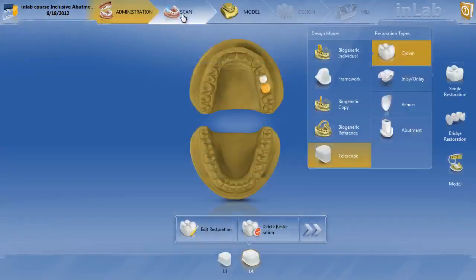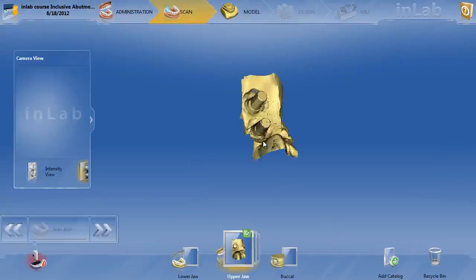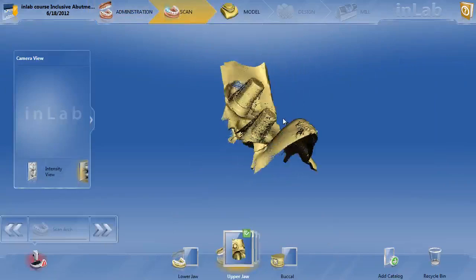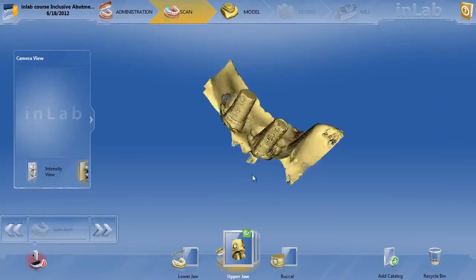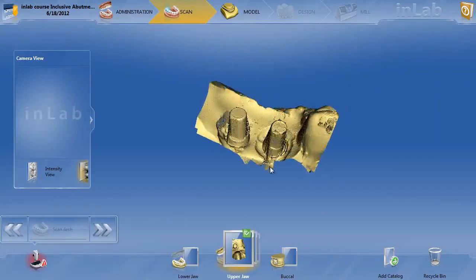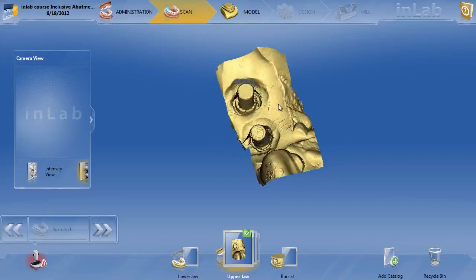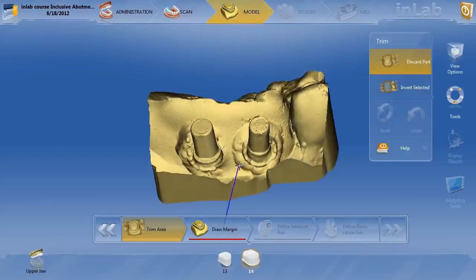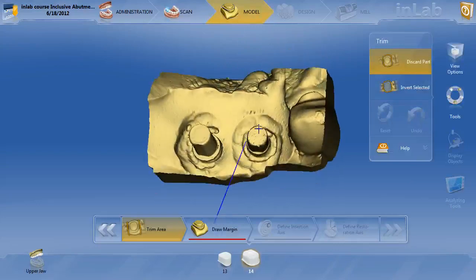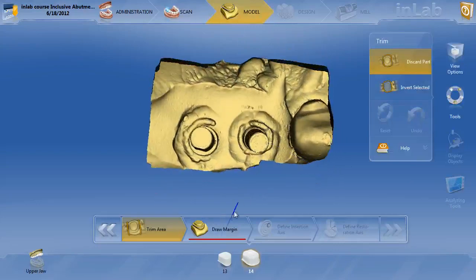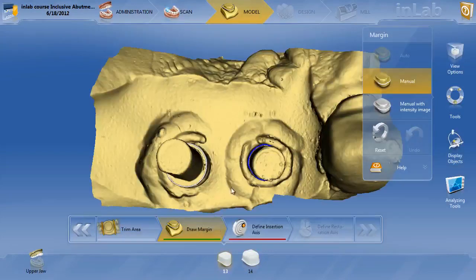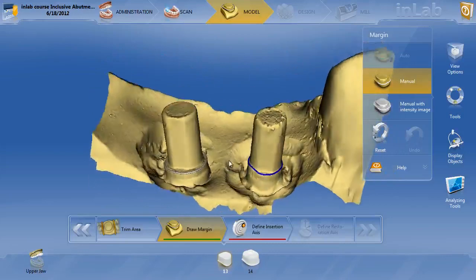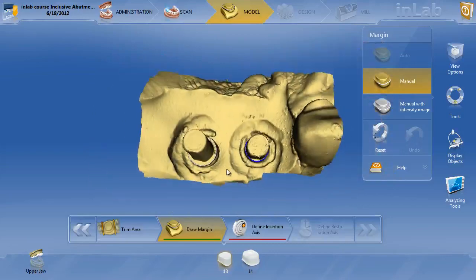Now if we go ahead and look at the images, for the purposes of this example, I just actually took an image on a model of the two titanium bases from Glidewell. I didn't take the opposing or the buccal bite. We'll go along to the model phase, and the first thing you do, you can see I've got these two titanium bases scanned. We need to draw the margins for both of the restorations. So here you can see I went ahead and drew the margins for both those Glidewell tie bases.